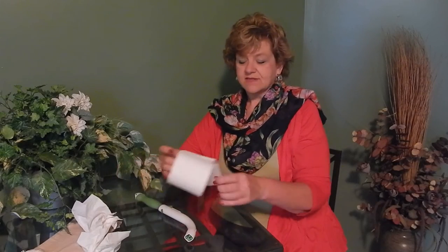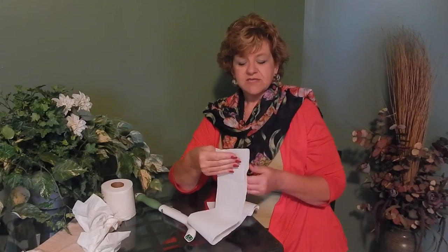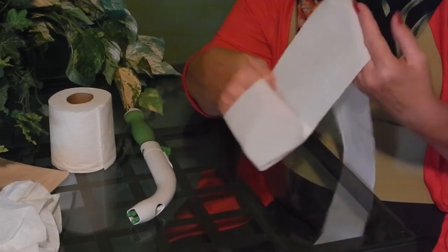Third way: a customer called us and sent his information, and he likes to do it this way, so we told him we would be recommending it. You take four fingers, put the tissue on, and wrap it around your four fingers. What you're doing is creating a tube.